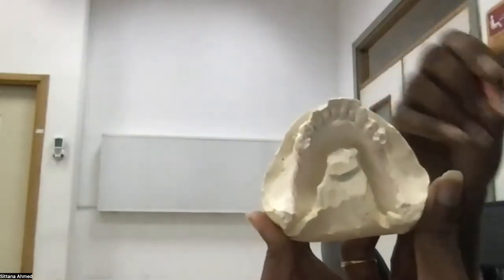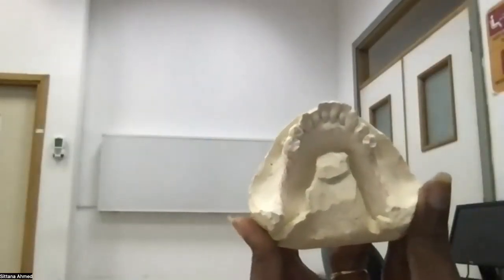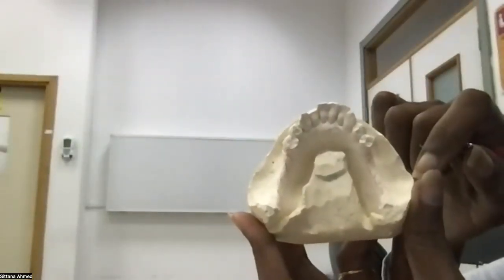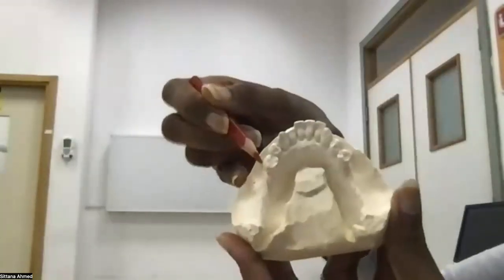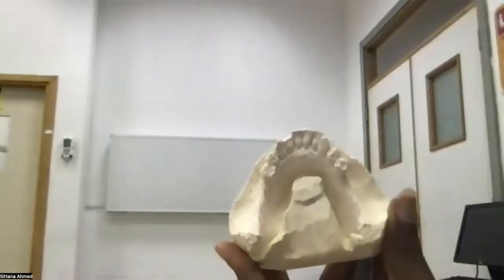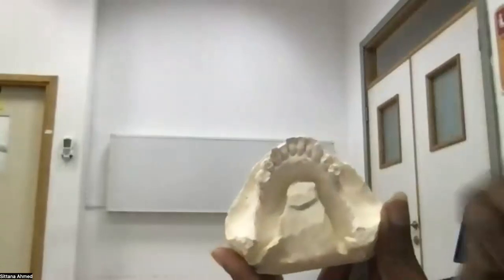Then number 4 is retainers. Retainers are direct and indirect. Let's start by the first one, which is direct. So this is a distal end. This is a distal end. So distal end, then the tooth next to the distal ends on each side needs to receive a clasp. You need minimum 1 clasp for each side. That's the minimum. You can add more. So for any case, you need 1 clasp for each side.